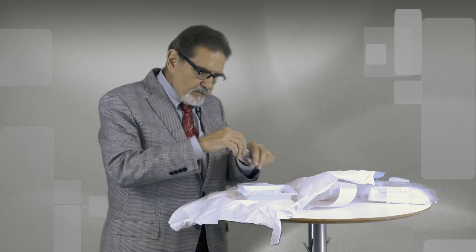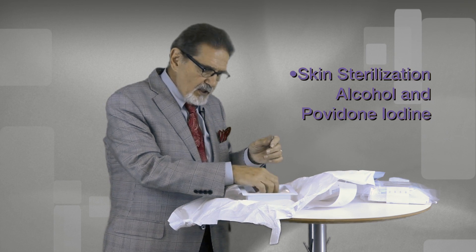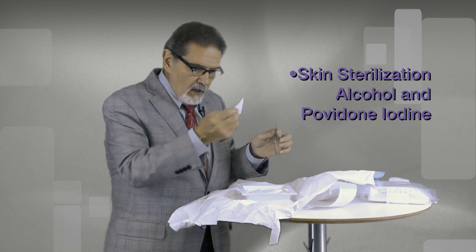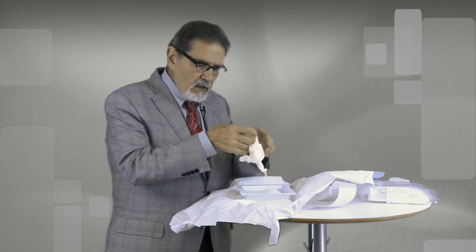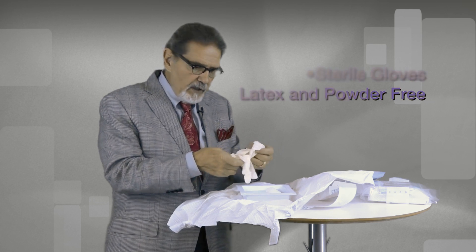The tray itself contains the necessary items for skin sterilization which are alcohol and povidone iodine. In addition, you've got sterile gloves that are latex and powder free.